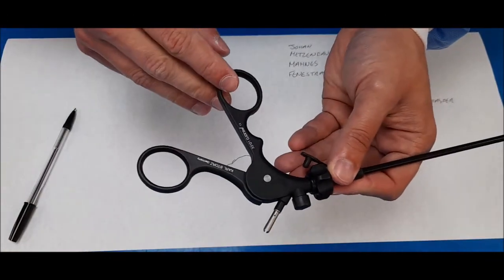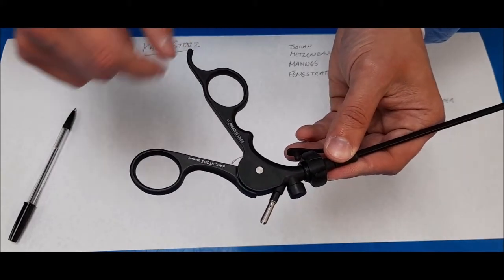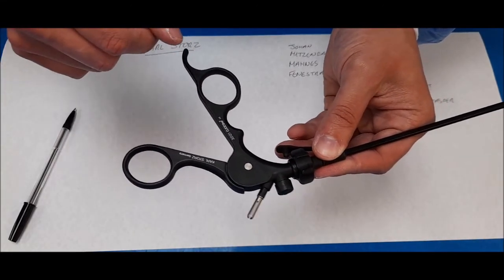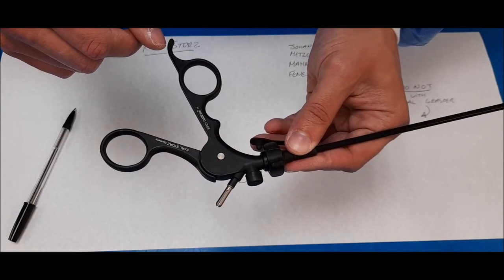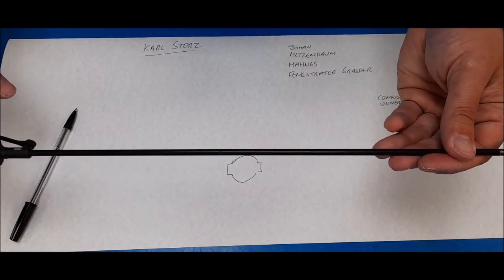There are some models of click-line handles that would have a ratcheting joint. It is best to make sure the ratchet is disengaged when doing this, however, we do not have ratcheting joint.